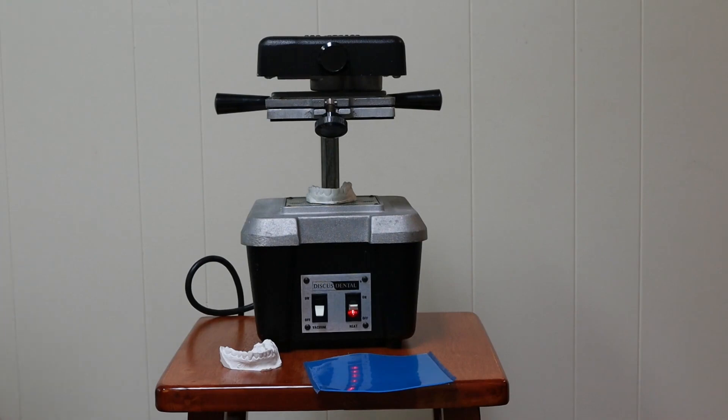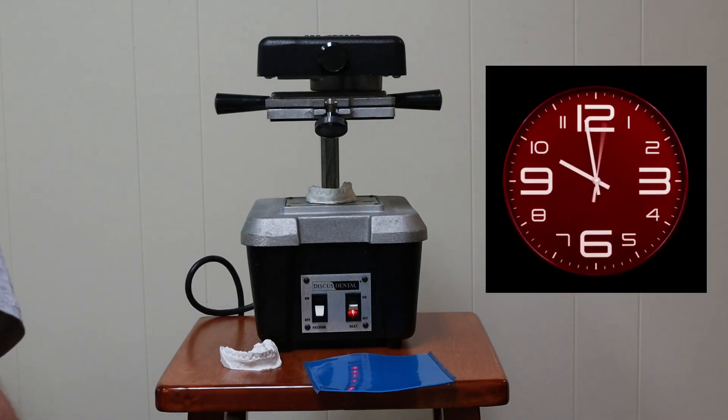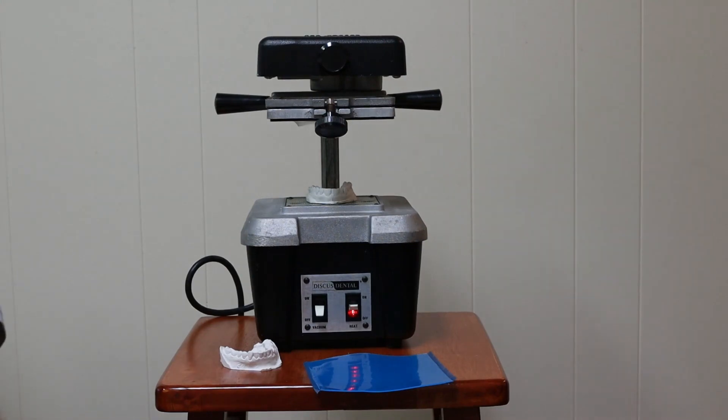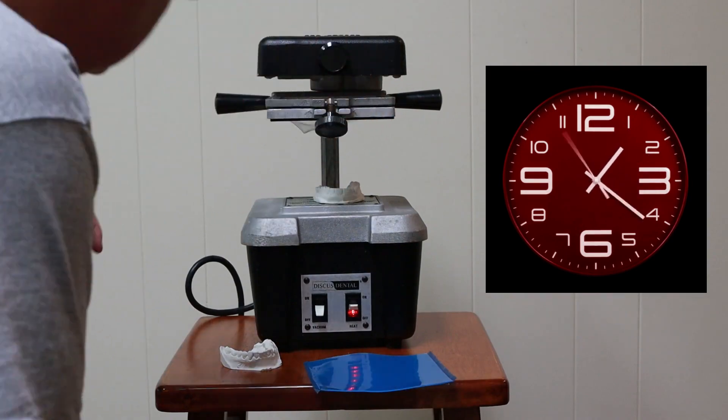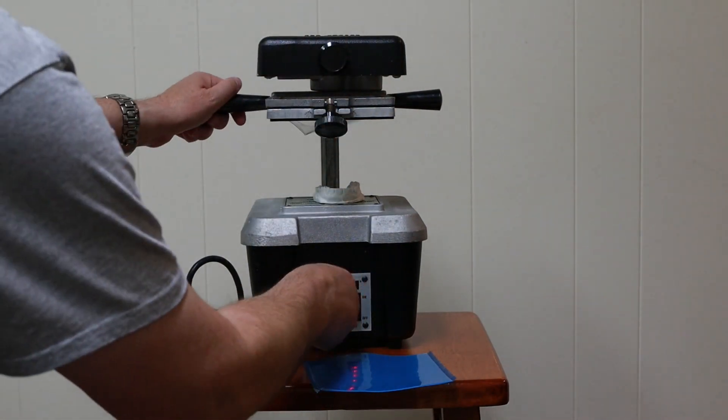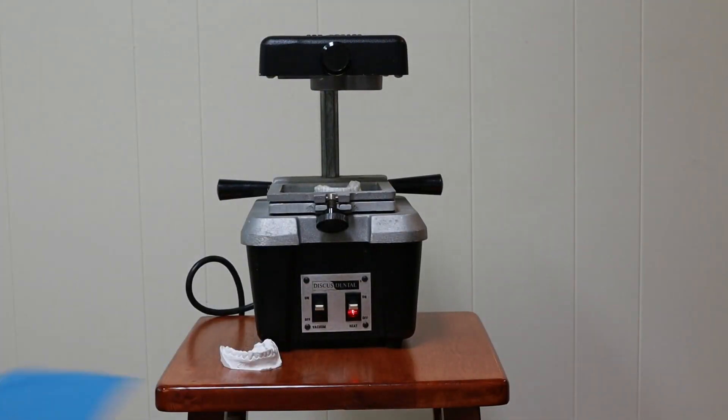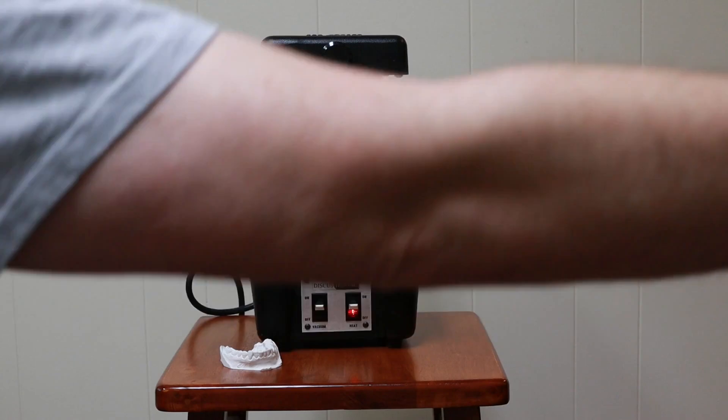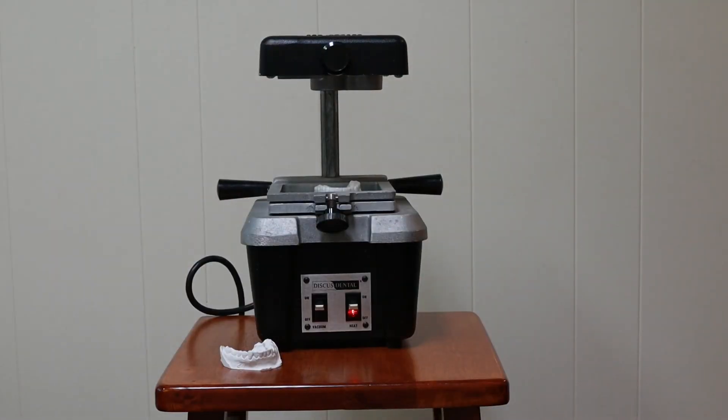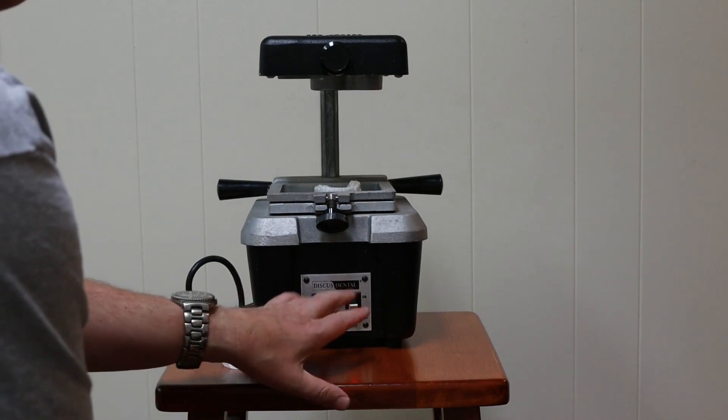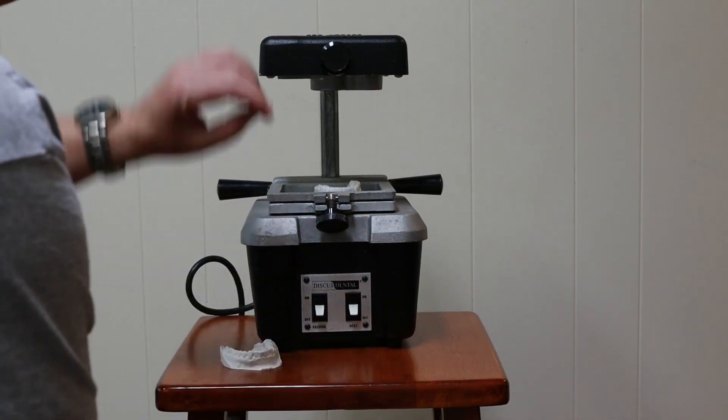This material is starting to get a little wavy now. Okay, it's starting to sag. Let's turn the vacuum on. Turn the heat off.